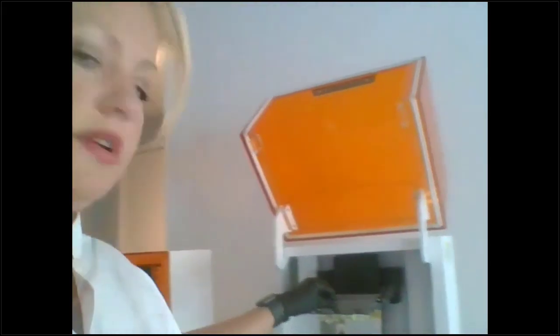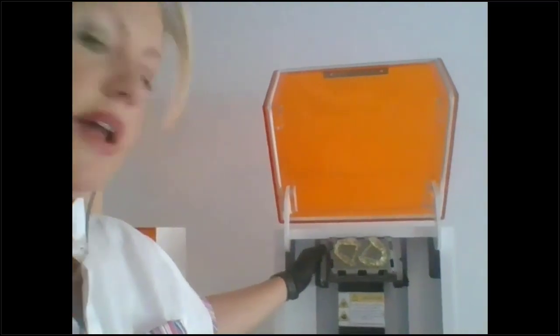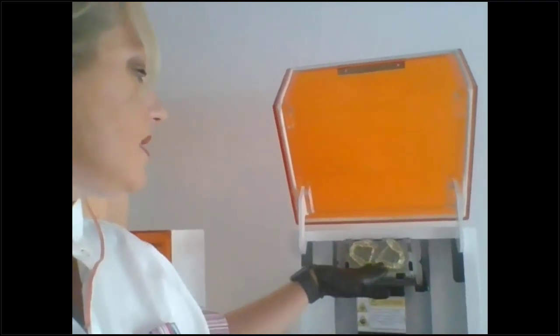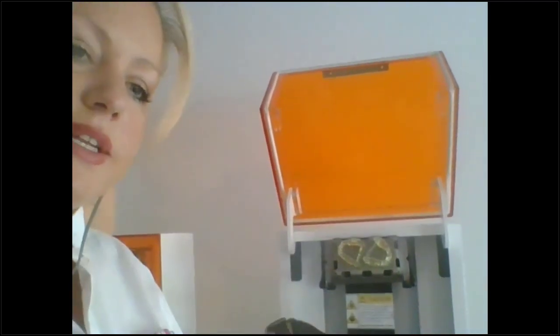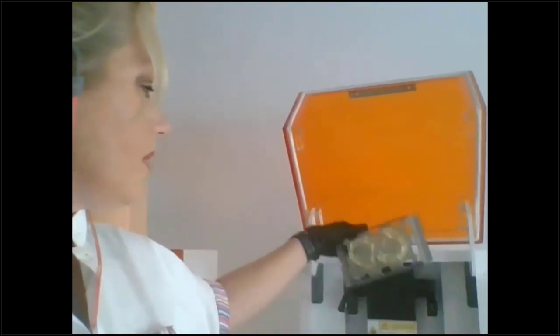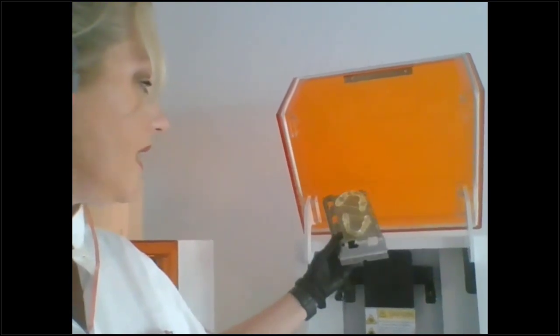So anyway, here's my build, and when I pull it out of the printer, I actually just set it up like this, and it's kind of nice. Like I said, it has that perforated build platform, so all the resin can drain down, and you can actually salvage a lot of the resin. I printed the one that I put that support bar on, and Lucas's that he already had the support bar on.